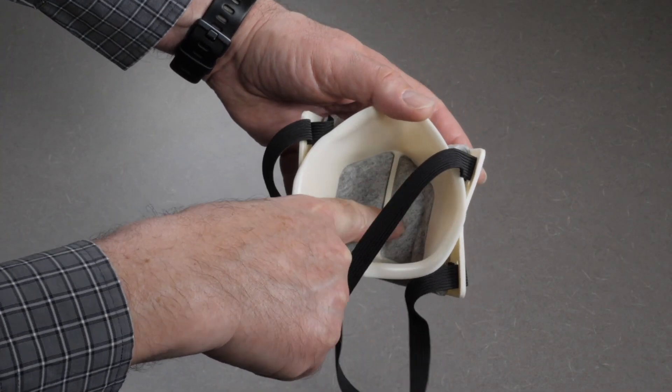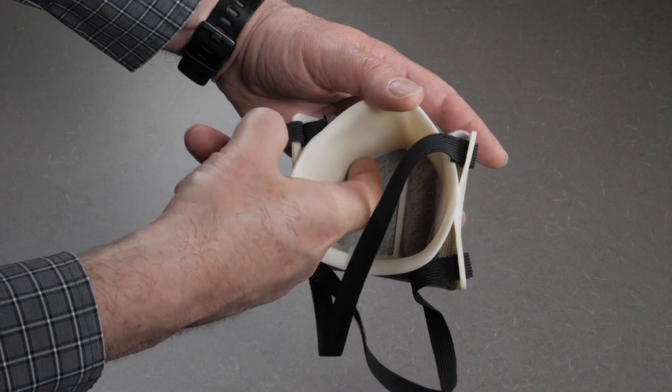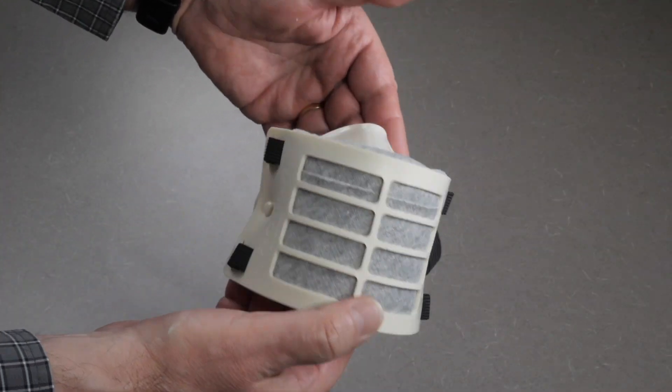Also check that the filter on the inside pillows without air holes and gaps. You now have an assembled mask.